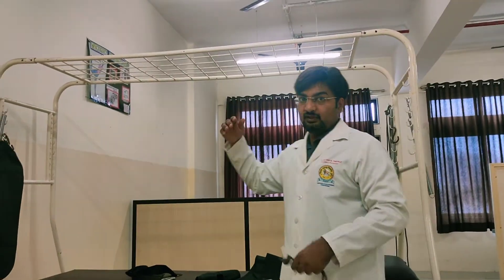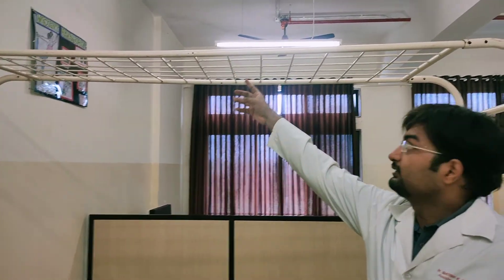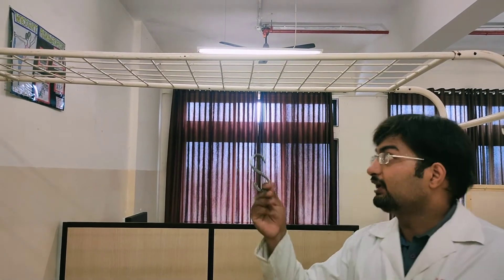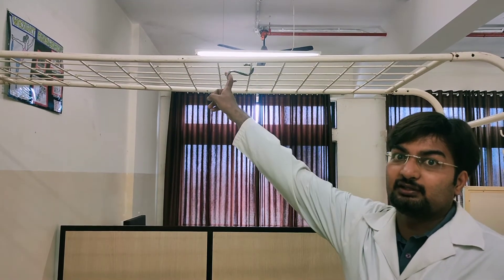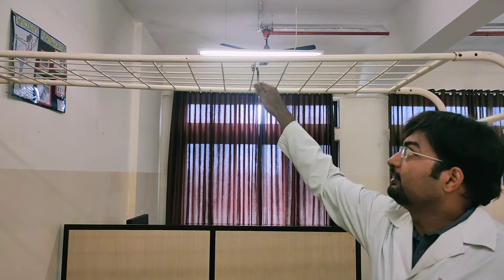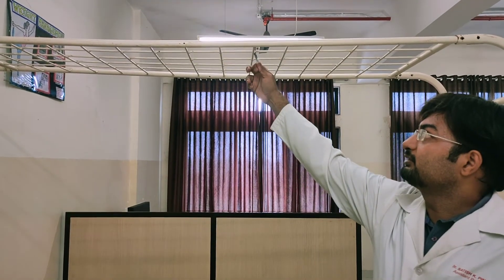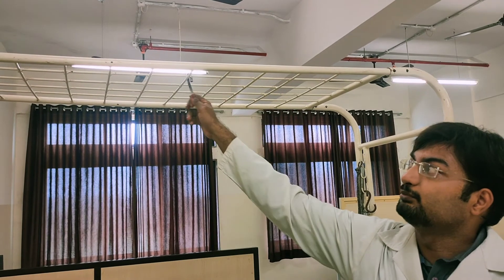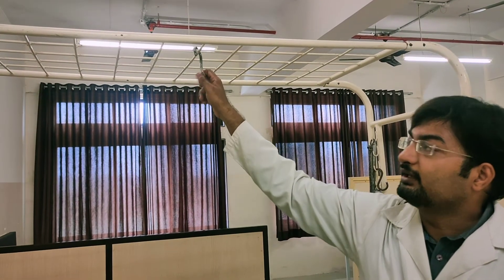This is the metal mesh. While using the S-hook, it has to be placed diagonally so that whenever there is movement of the arm it will not move around. If you just place it straight at one side, it will move with the movement. So always place it diagonally.